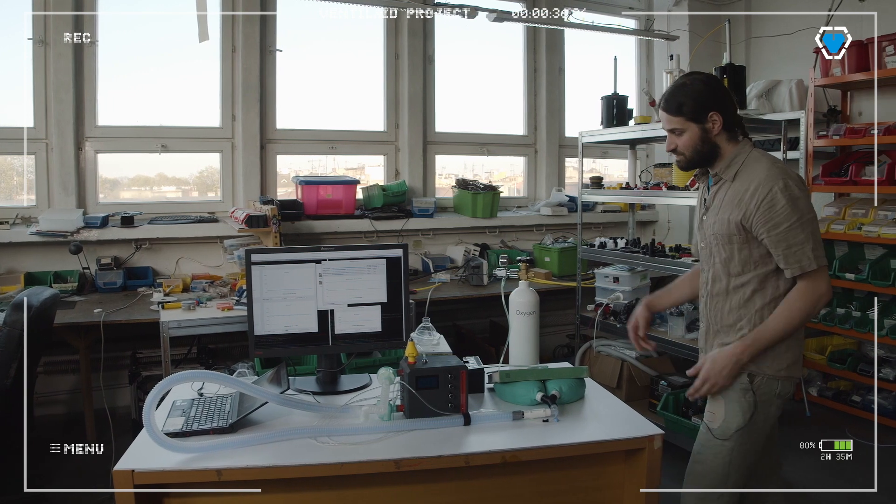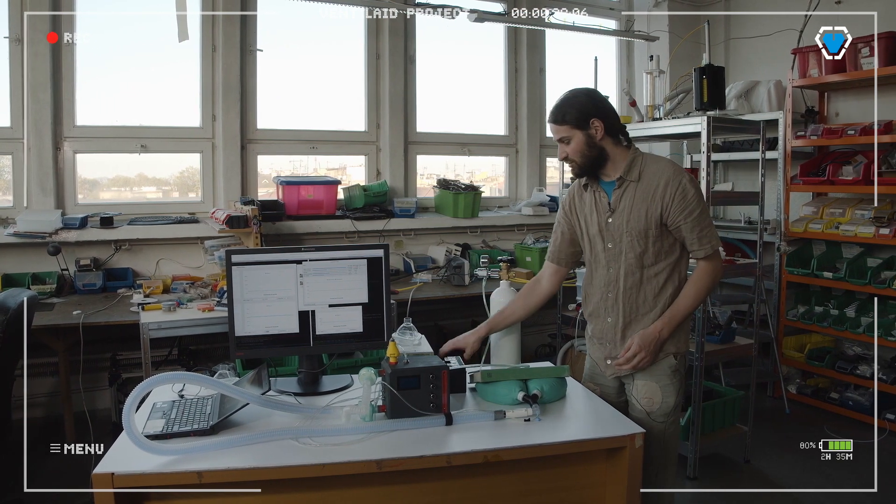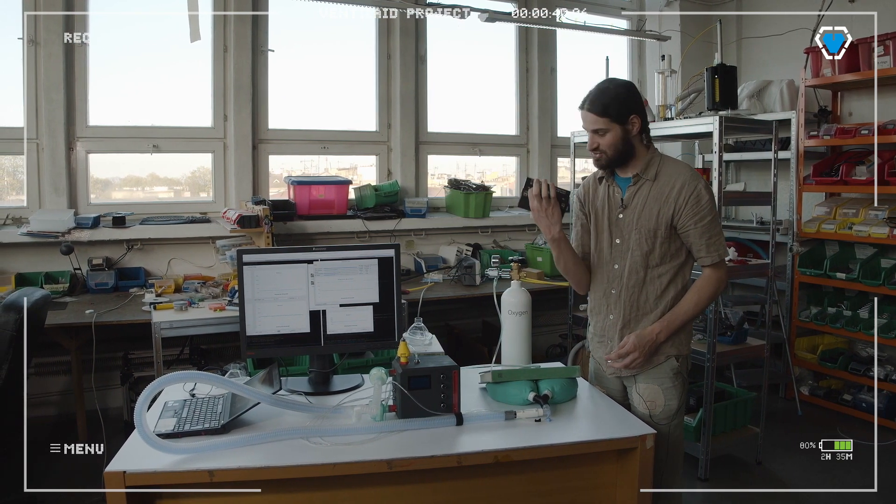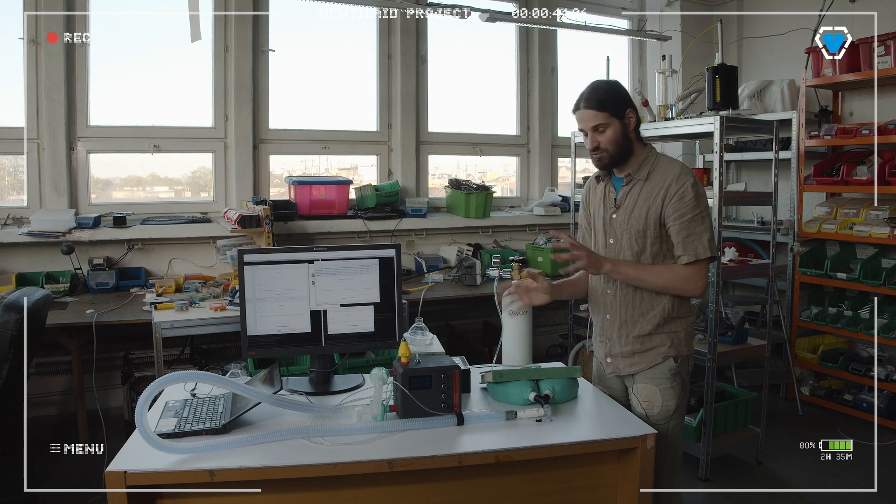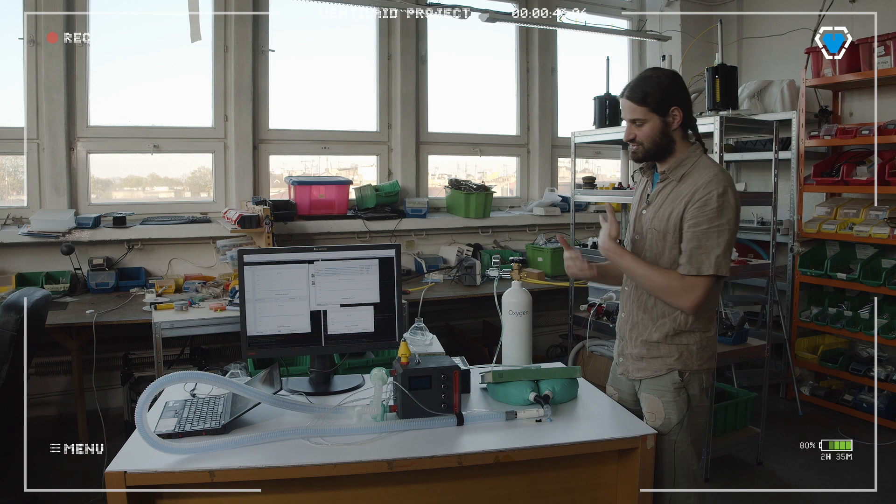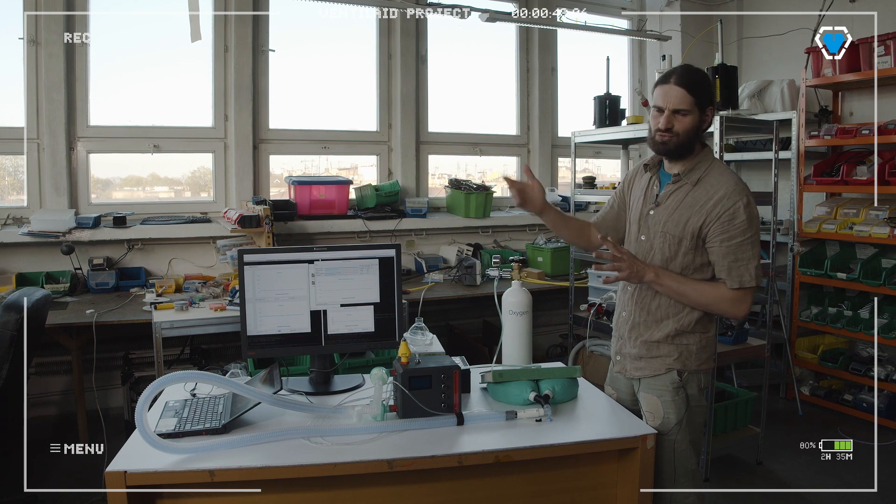We have our power supply which we use right now. You could also use a battery. This is a small motorcycle battery.